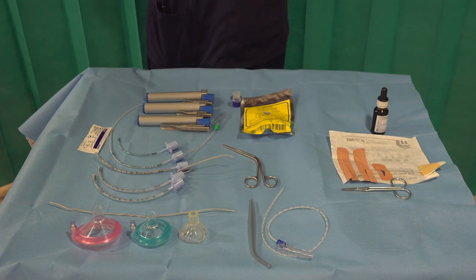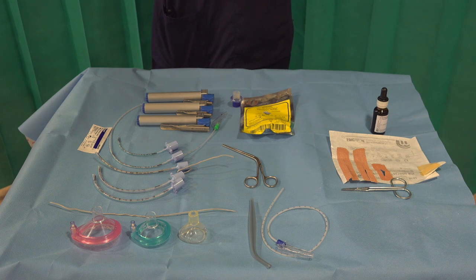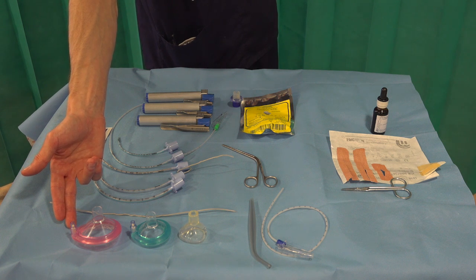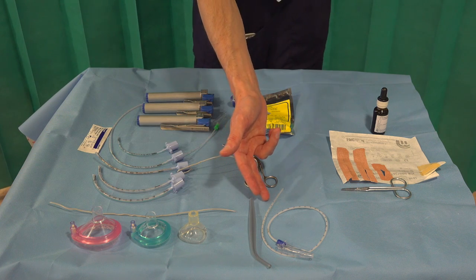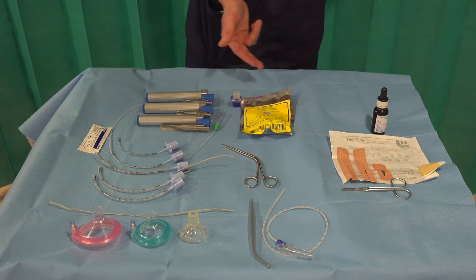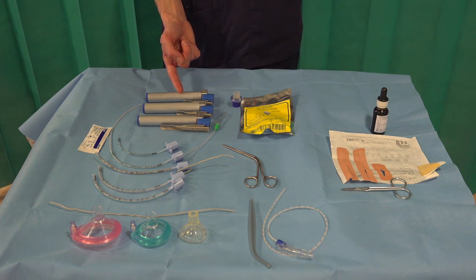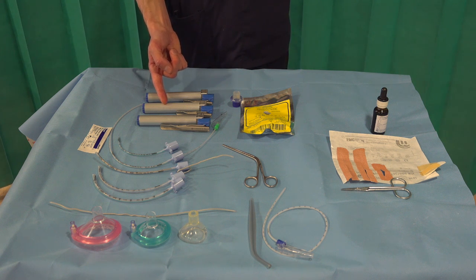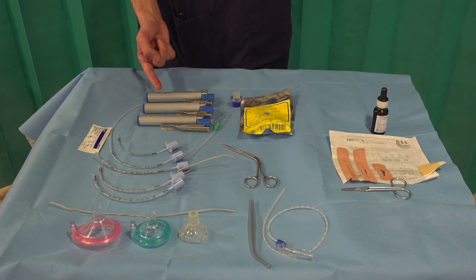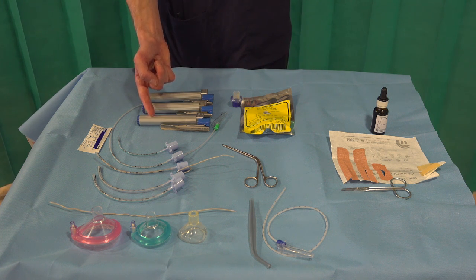This is the equipment we should have when performing an elective intubation, and all equipment should be appropriately sized for your baby. Firstly, we have a range of face masks — make sure the pressures on the neopuff are set appropriately. Suction catheters should be checked and appropriately sized. We have our laryngoscope blades: a Miller 00 for babies less than 28 weeks, a Miller 0 for 28 to 36 weeks, and a Miller 1 for a full term baby. It is really important to pick the correct sized blade, as the wrong size will obstruct your view.